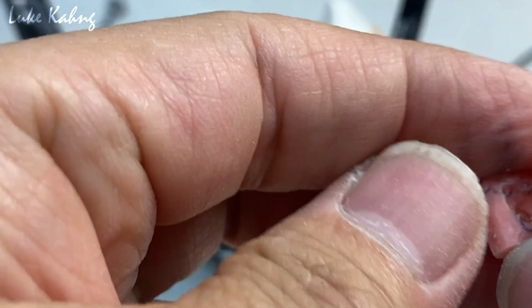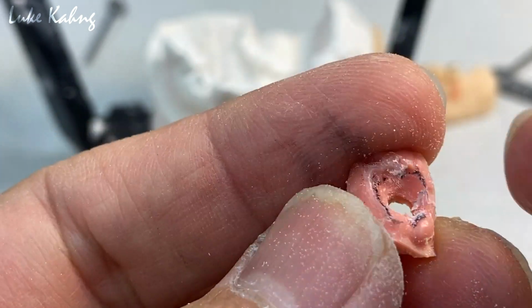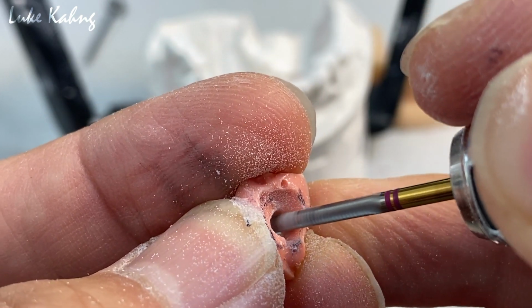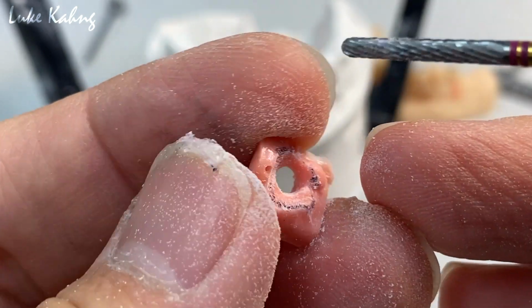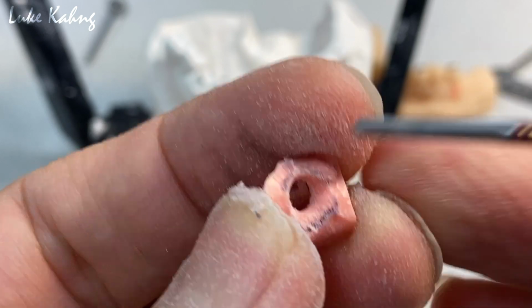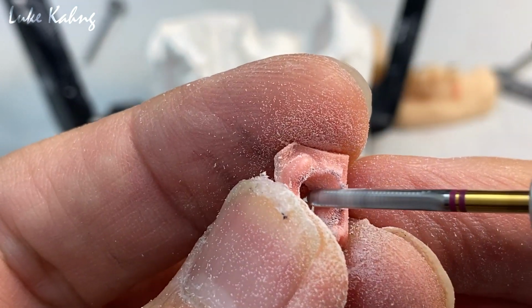Okay. So I give the indentation for the facial. Just like that, now it's ground with a carbide bur. So make the rectangular shape. Open it more. That's why the doctor sent it to us for the provisional temporary. So regardless of digital plan or analog, it doesn't matter. What matters is the technician. So we have to build it correctly.